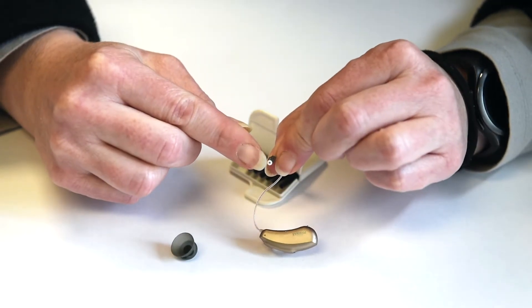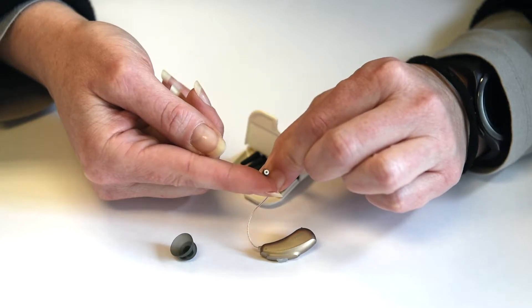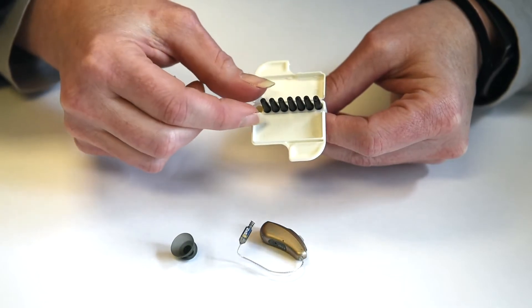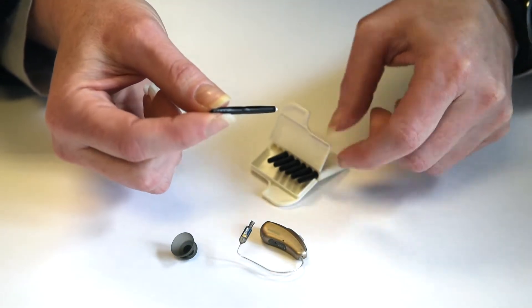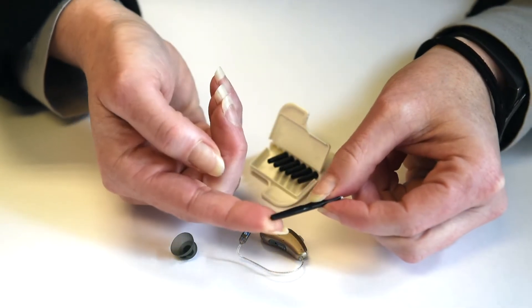Underneath you'll see the old white filter. You should have some of these at home, looks like a little matchstick case. If you pull it out, you have a new white filter on one end and a little empty spike on the other.